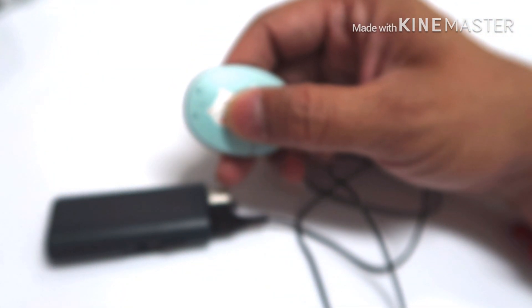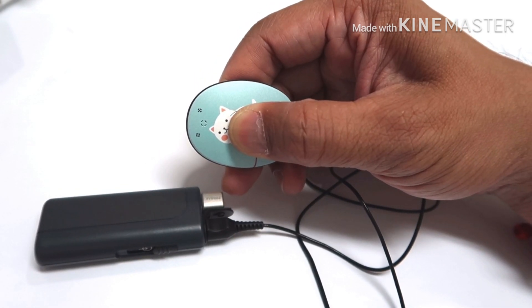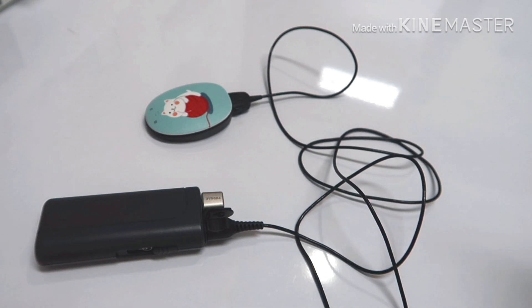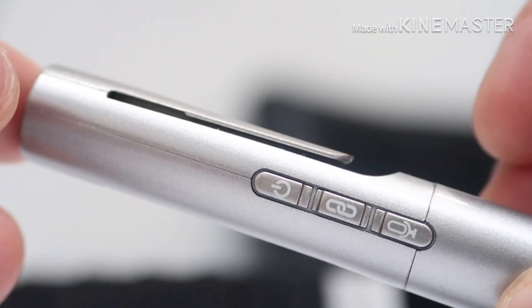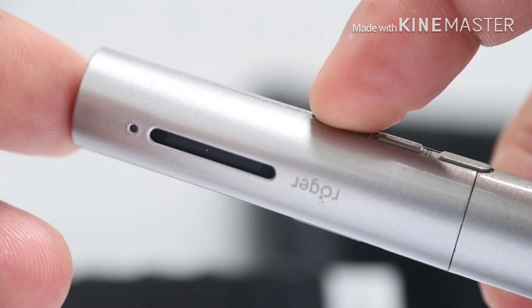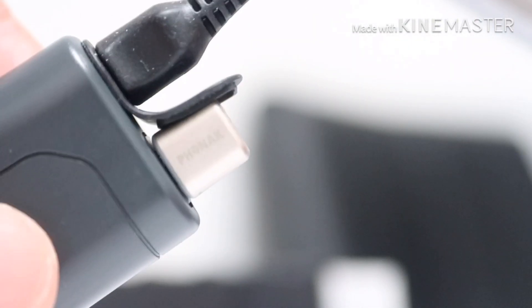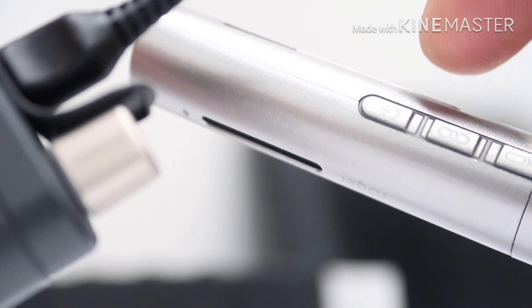Turn on also your Rondo 2 audio processor by pressing the power button in the middle. Upon pressing, you should see a blue light followed by a red light corresponding to the program number of your audio processor. For the transmitter, turn on your transmitter by pressing the power button and synchronize it with the receiver by pressing the chain icon on your transmitter.